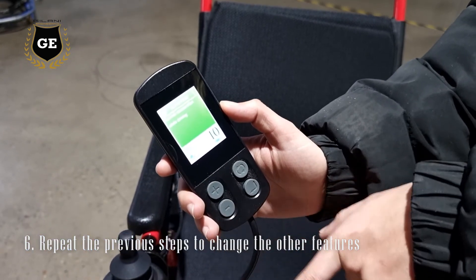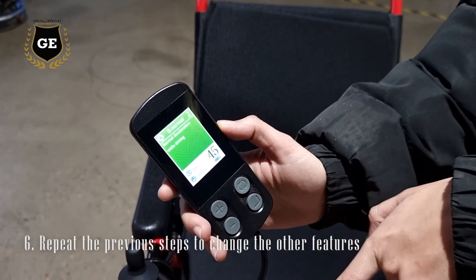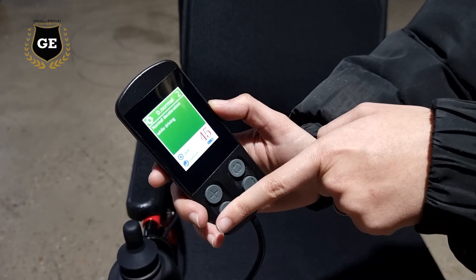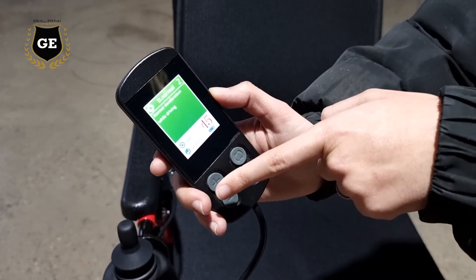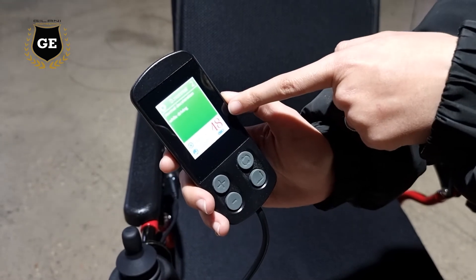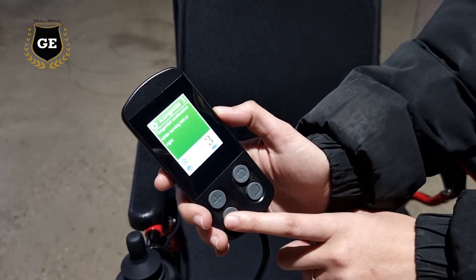To move on to a different feature, press the minus or the plus button, and so on. I can change this — I'm going to increase the number to increase the deceleration while driving. This is the number I want to stick on, and I'll press the enter button to confirm.